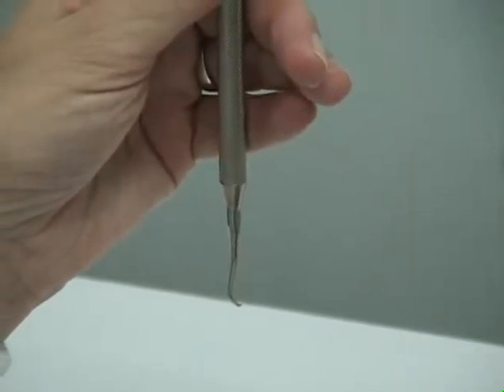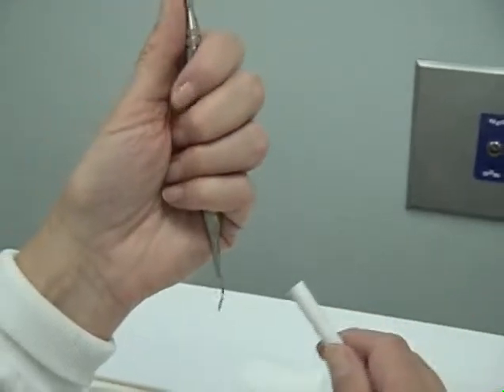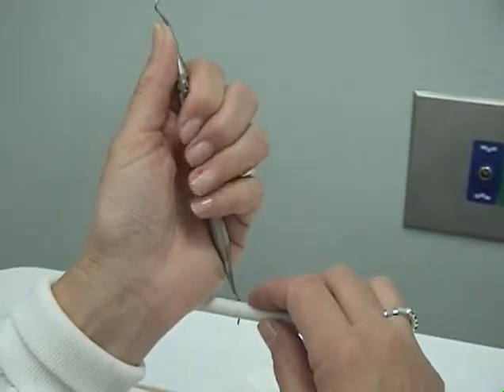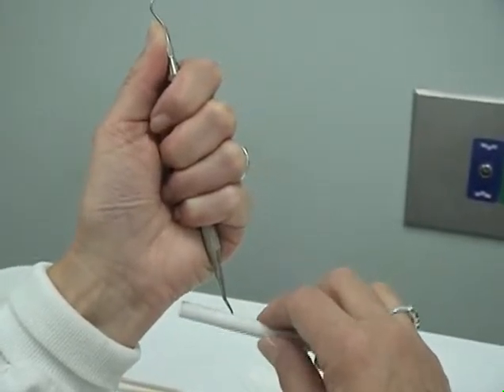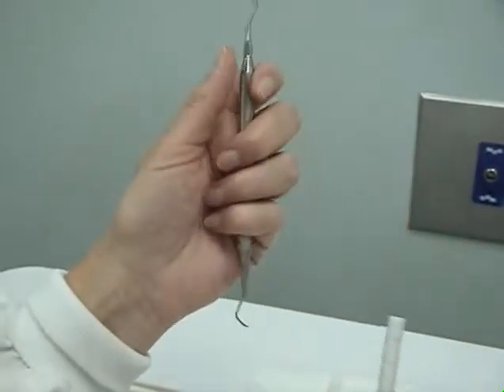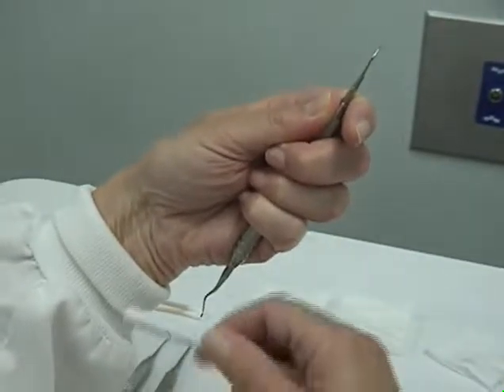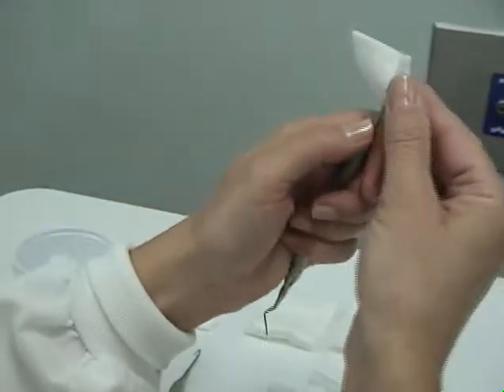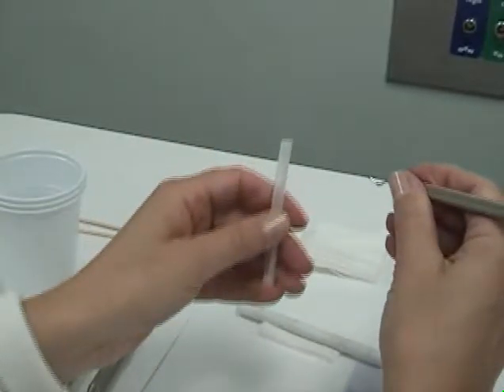Now follow up with your finishing technique with the conical stone. With the toe facing you, place the stone at three and nine o'clock. With three upward motions, roll the stone across the face of the instrument, then reverse it to the other end and complete the technique. You are now ready to test your instrument against a testing stick.